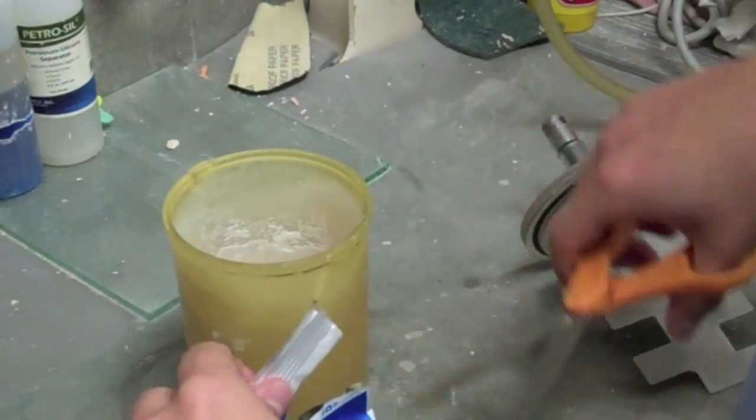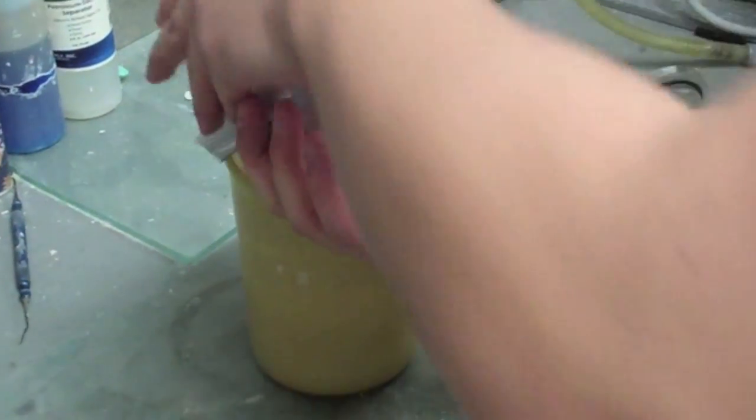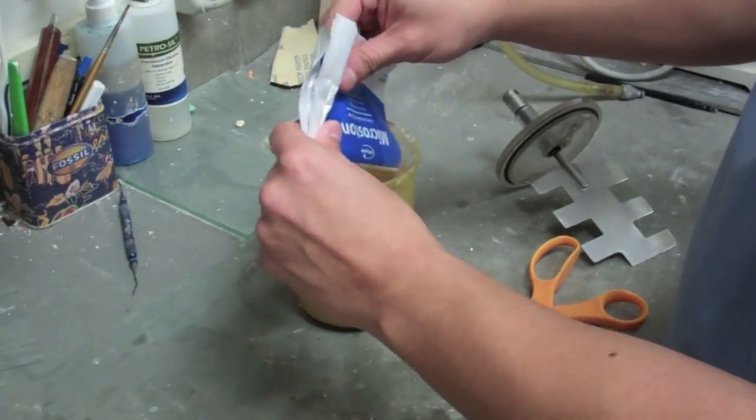In the lab, the Wipmix bowl available will be much smaller. It is probably best only to use one package per mixture. This will prevent stone from getting inside the vacuum hose.